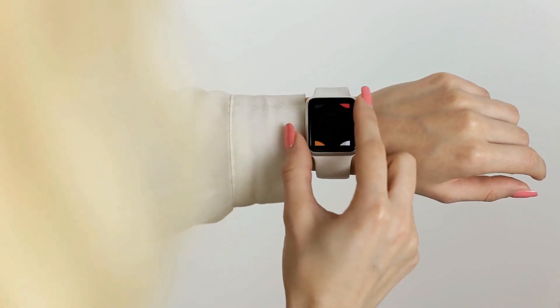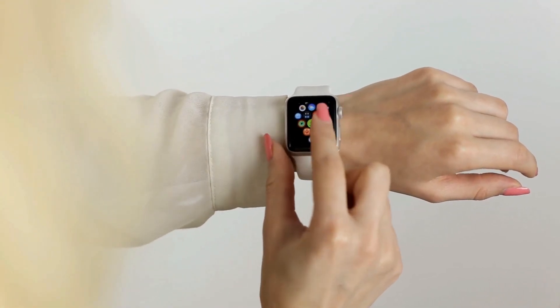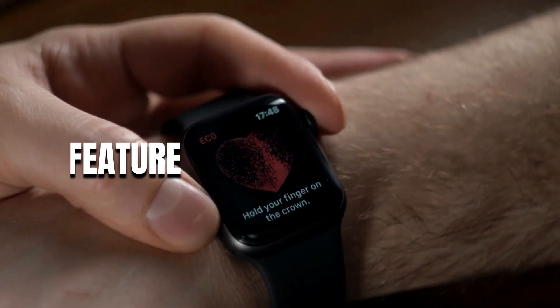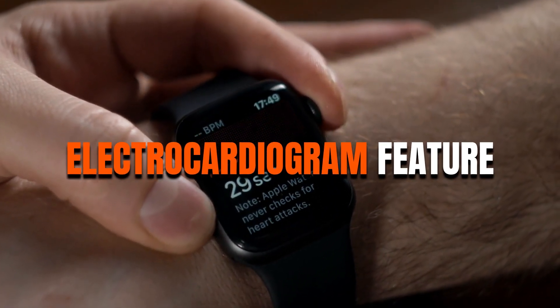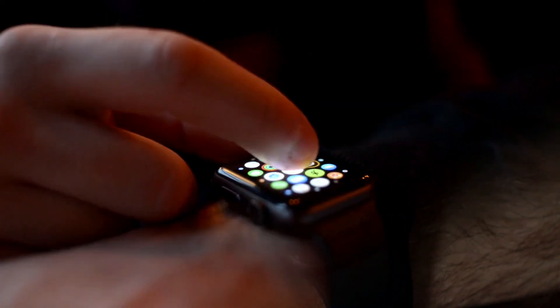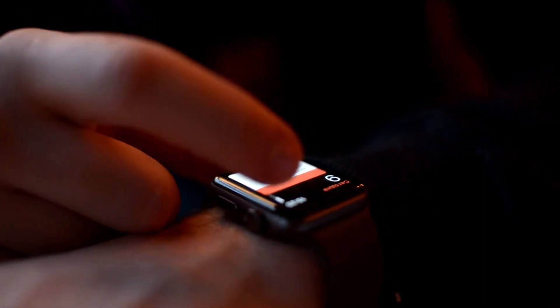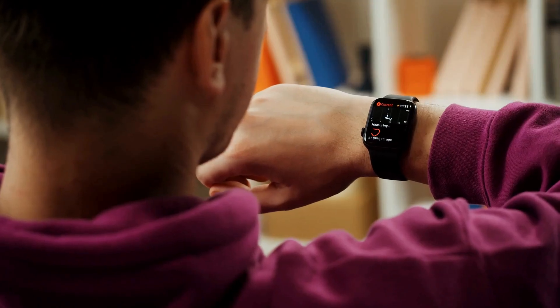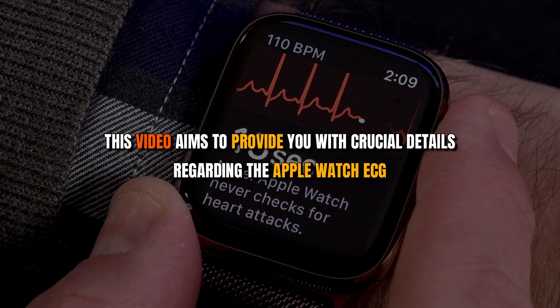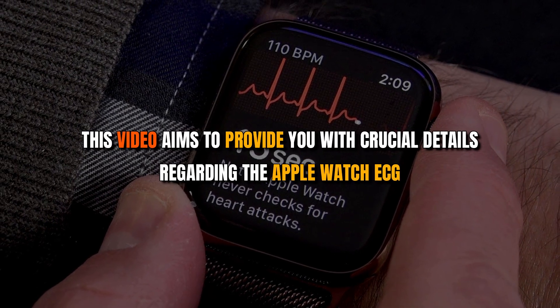The Apple Watch has gained popularity as a wearable device renowned for its advanced features and functionality. Among its notable attributes is the electrocardiogram feature, which enables users to conveniently track their heart health. The Apple Watch ECG has attracted interest from both technology enthusiasts and individuals who prioritize their cardiovascular well-being. This video aims to provide you with crucial details regarding the Apple Watch ECG.